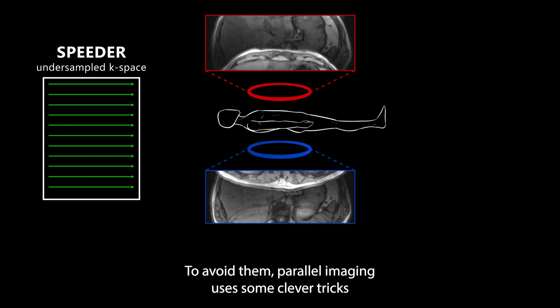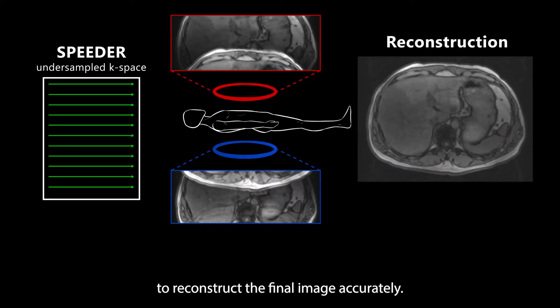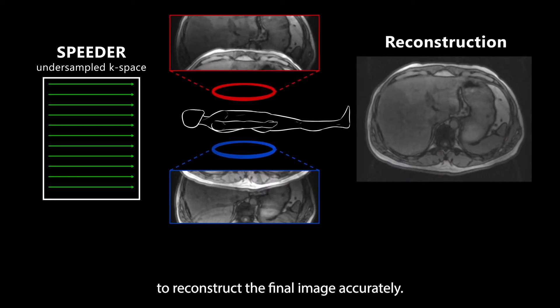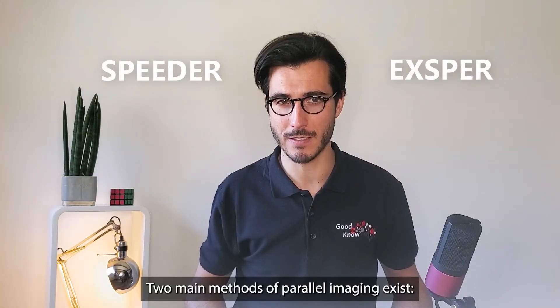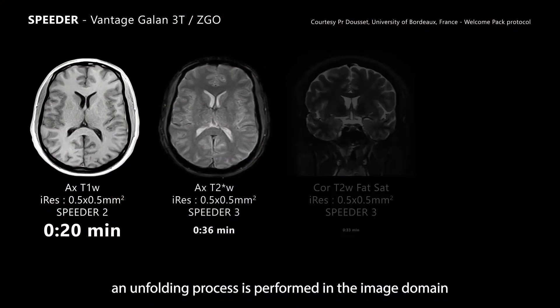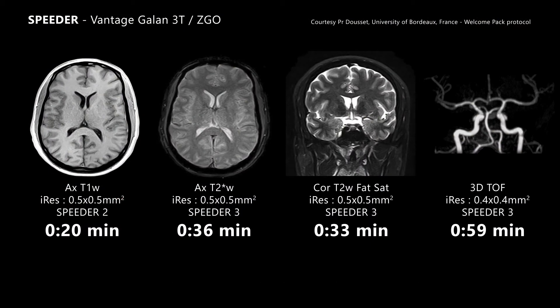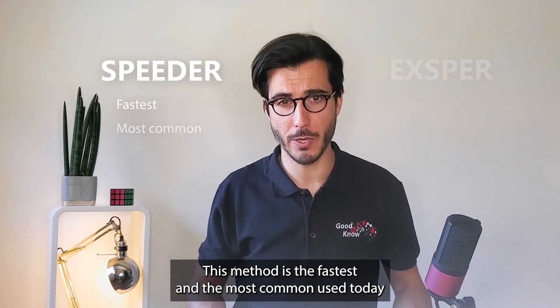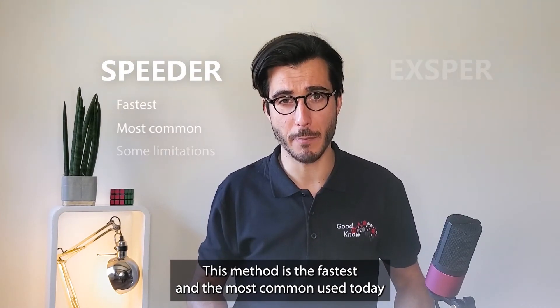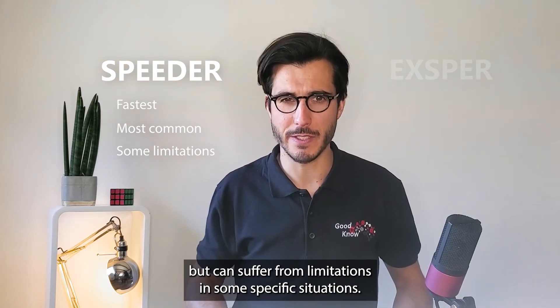To avoid them, parallel imaging uses some clever tricks to reconstruct the final image accurately. Two main methods of parallel imaging exist. With SPEEDER, an unfolding process is performed in the image domain after the Fourier transform. This method is the fastest and the most common in use today, but can suffer from limitations in some specific situations.